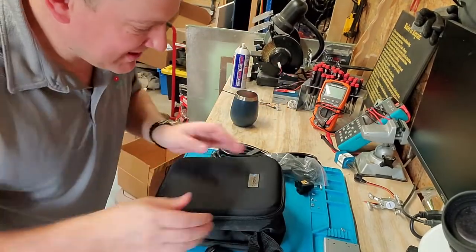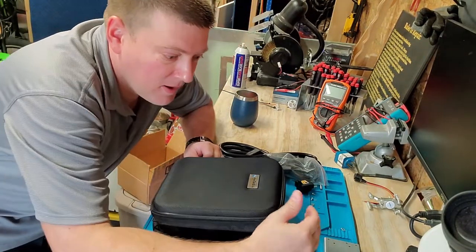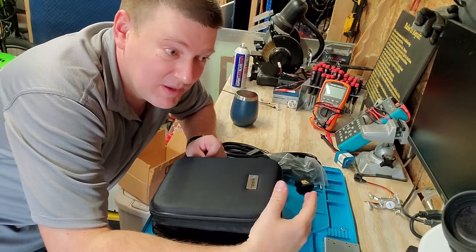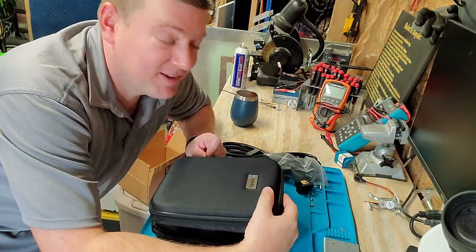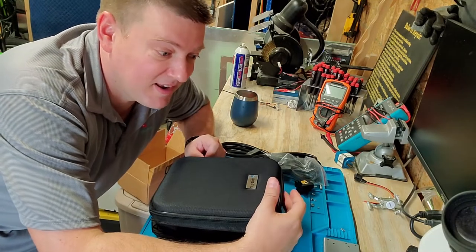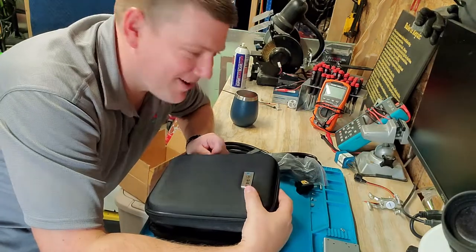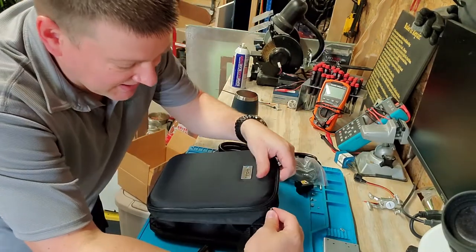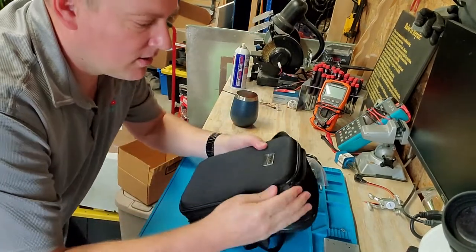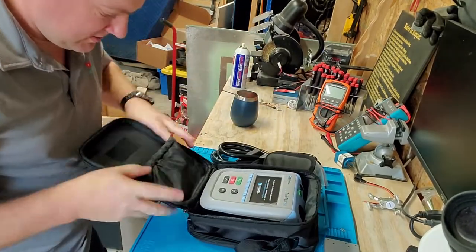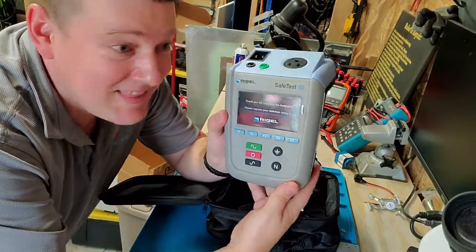This guys, this would be the electrical safety analyzer that I had from the MD Expo in Dallas. This would be the unit that I showed in the video that I said I was extremely excited about because it's portable, it's got nice giant buttons, it's got the recessed screen.